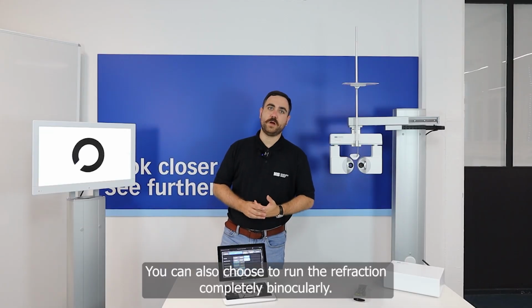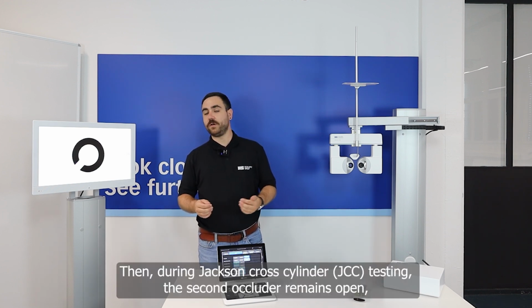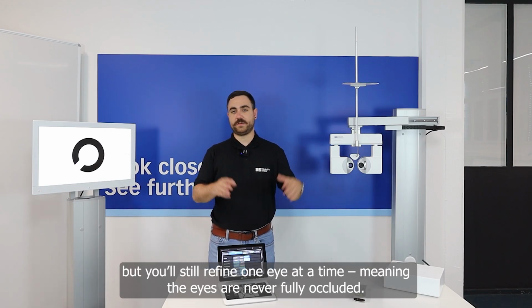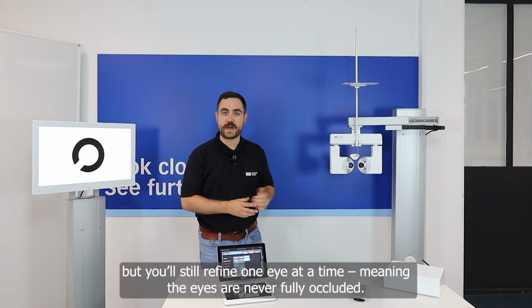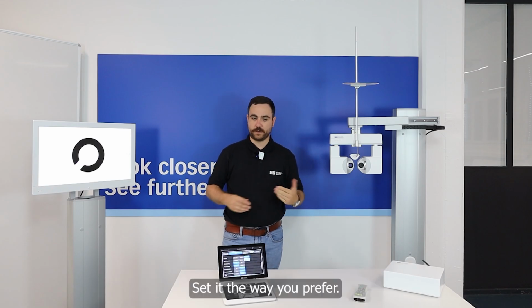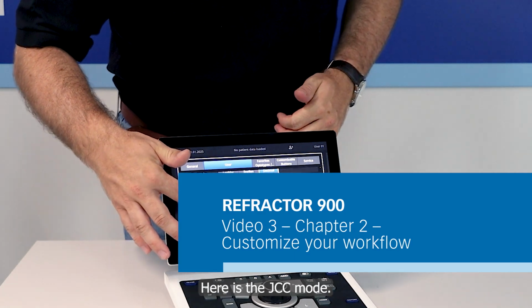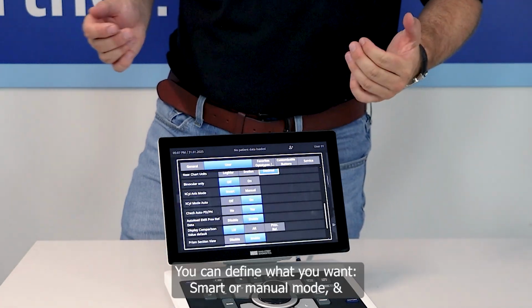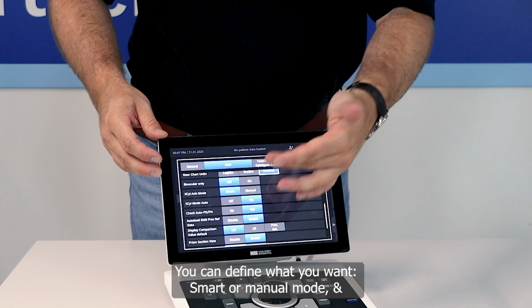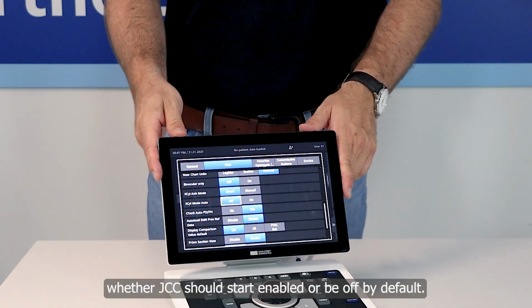If you want, you can make the refraction completely binocular. Then during the cross cylinder mode, the second occluder will be open, but you still make the refraction on one eye, which means the eyes will never be closed. So it's like you prefer it. And here is the cross cylinder mode: you can define whatever you want. We have a smart and a manual one. Also you can say it should be on directly, but you can also switch it off.